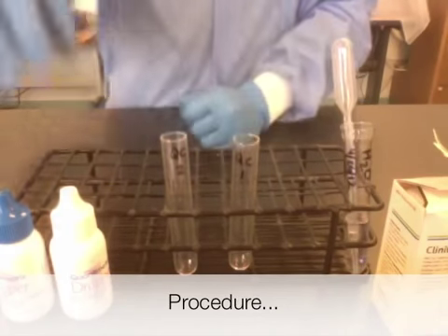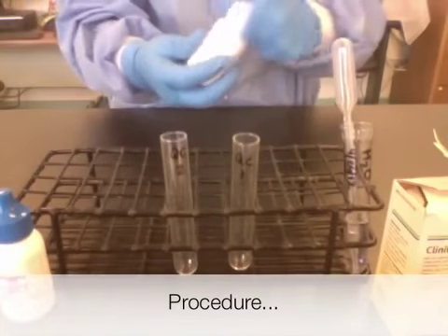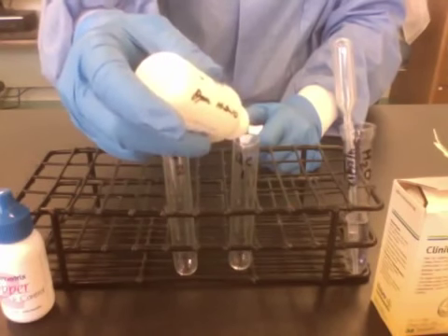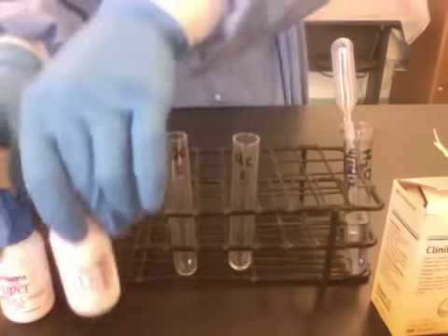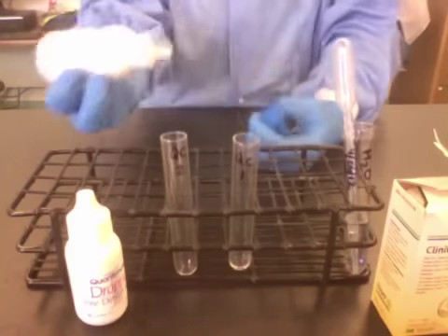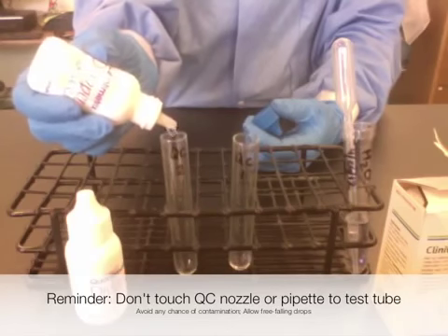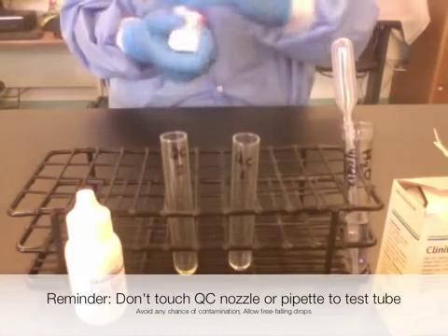Then I'm going to add my sample. Mix it first, then add five drops. If you're adding urine, you would just use a transfer pipette. I'm using quality control, so it comes in the bottles.